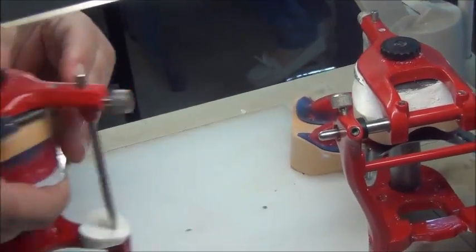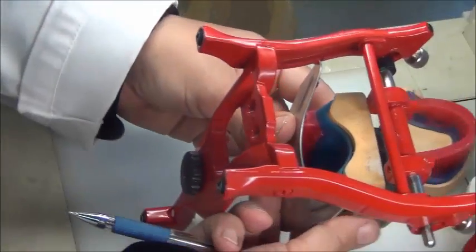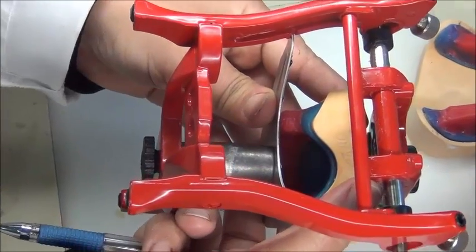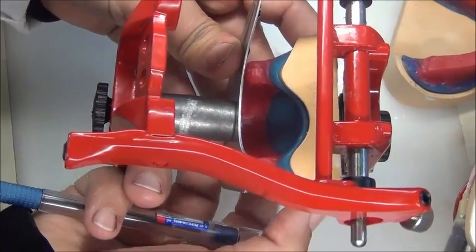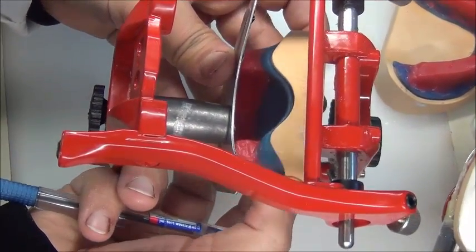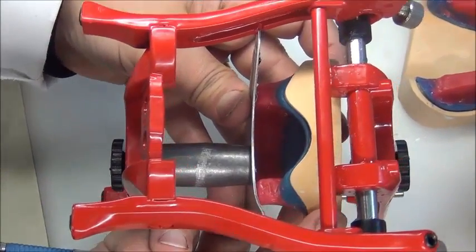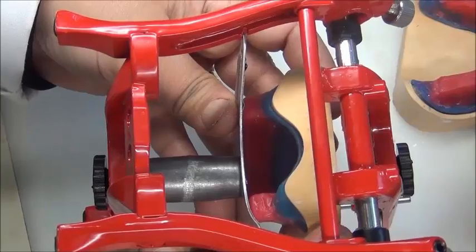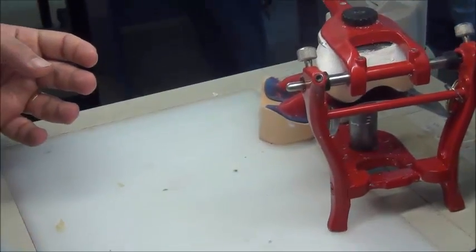You can see it better with the unmounted cast. But watch here. Okay, this still is unmounted, but look how sometimes you have a shift. See this ridge compared to the upper member of the metal? Okay? Compare the metal with the ridge location. So this is shifted to the left or right. It's centered when the ridges are in equal dimension, equal distance from these metal members in comparison. It's not shifted to the left. It's not shifted to the right. Okay? So this is for the upper. This is how we are going to judge your upper mounting.